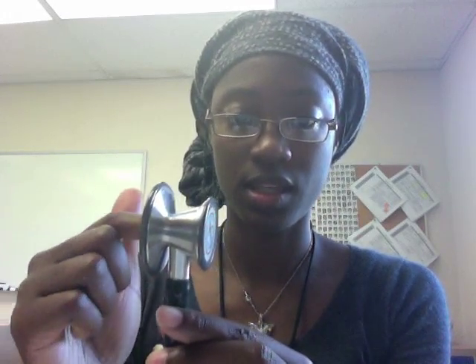This is the part that goes on the patient's skin, and this is where you're listening from. On this particular model, there are two flat ends, or diaphragms, and the diaphragms are the listening portion. Many models will come with two separate heads, where one side is the diaphragm — covered like this one is — and the other side is considered a bell, which we'll talk about later, and that is open with no covering over it.